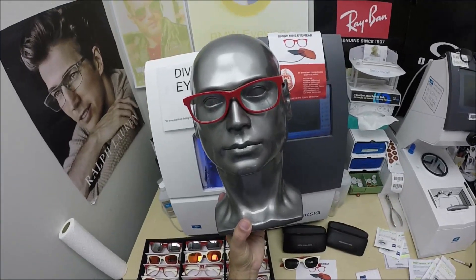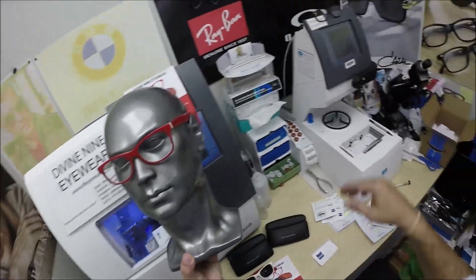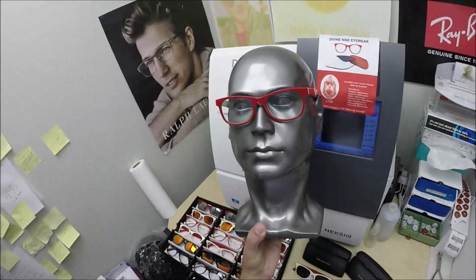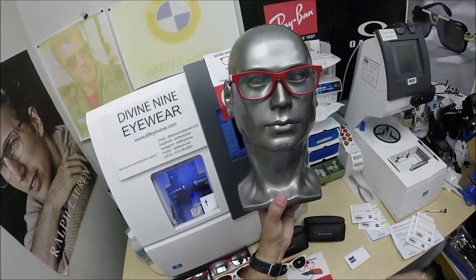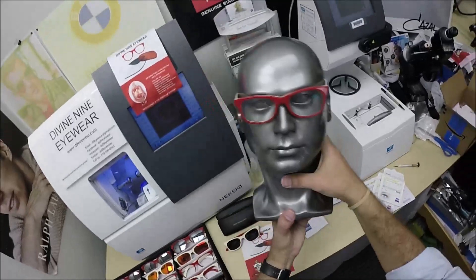These sell for $149 complete with one free pair of clear single vision prescription lenses. The classic line style bifocal, like our grandparents wore, is $199. And the progressive invisible lens is $249 — like Cheryl got with progressive lenses.